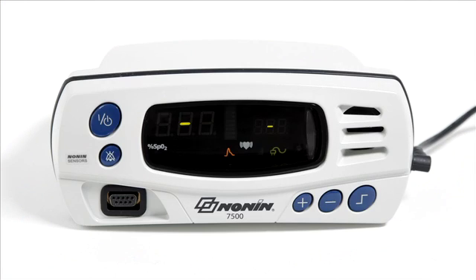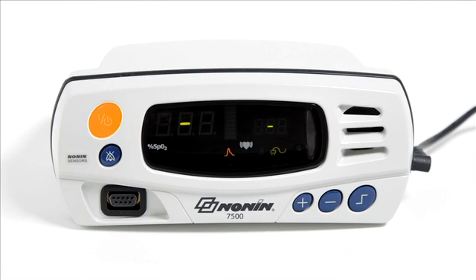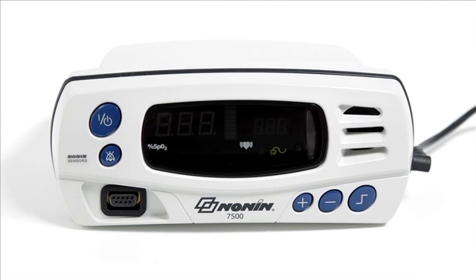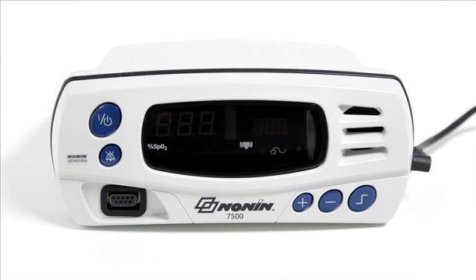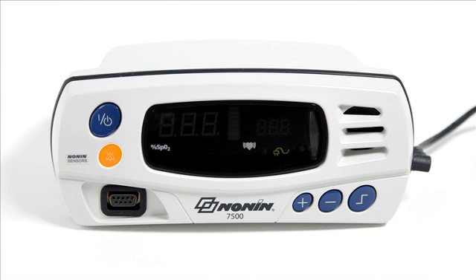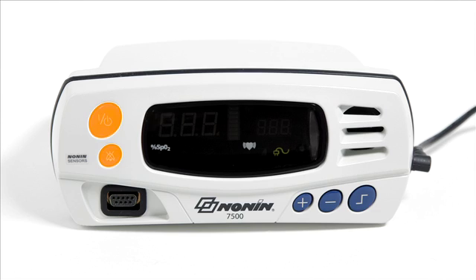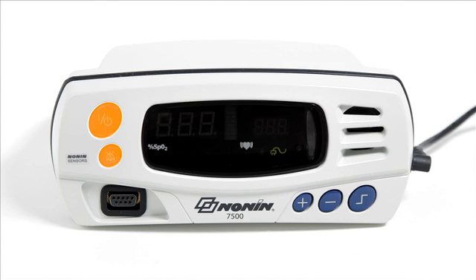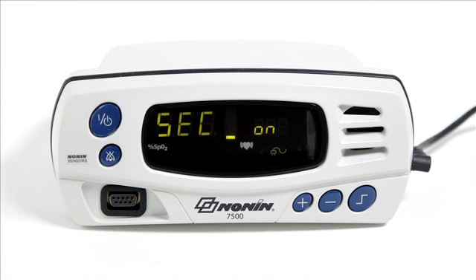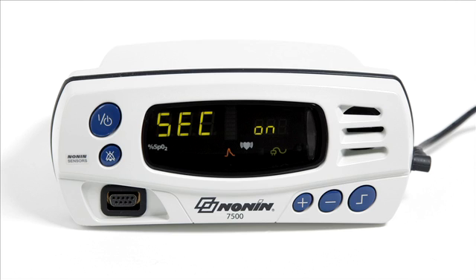You may return the oximeter to patient security mode after setup by first turning the oximeter off. Then press and hold the alarm silence button and press the on-off button to turn the oximeter on. The oximeter will go into patient security mode.